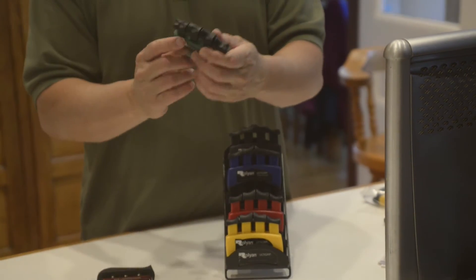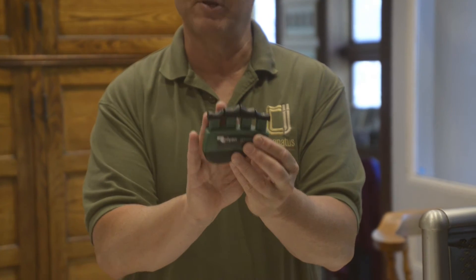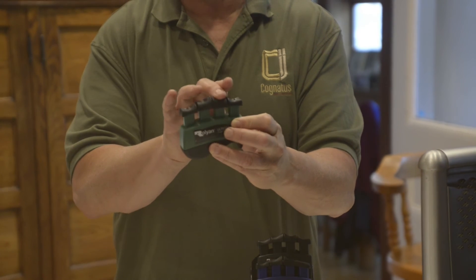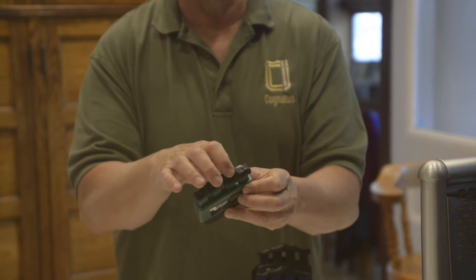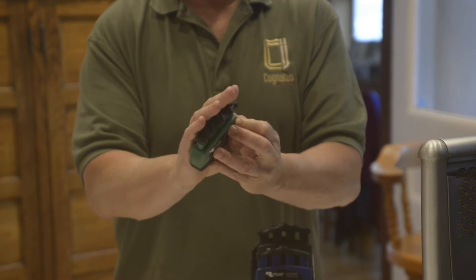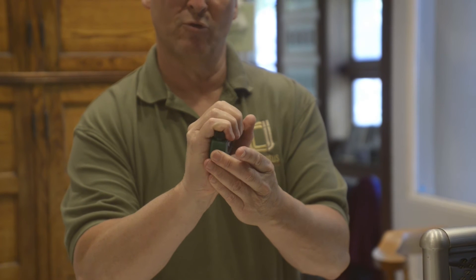The four things you'll see right away are: we made the plungers independent, we built an arch to it, and a lot of work was done on the fingertips. There is sidewall support so that your fingers stay in place, there are divots if you're doing things like fingertip flexion, and it's nicely rounded for things like gross grasp.